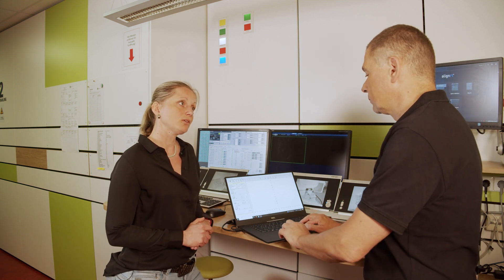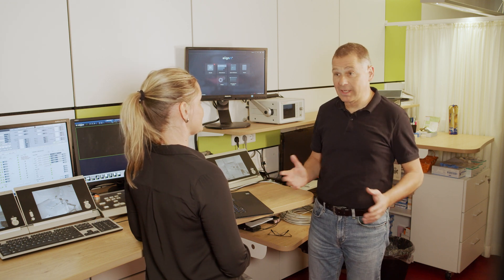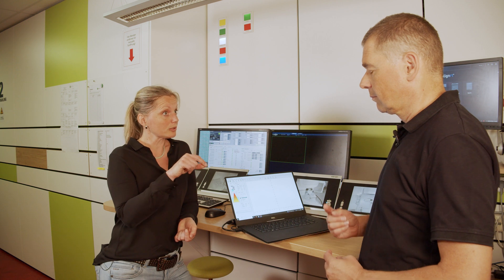The auto setup is finished now. You can leave the auto setup menu and start directly your measurements with the BeamScan. Directly? I'm a physicist. I have to check this out — I can't believe that. You can really trust BeamScan. But you could also do a small experiment: move the detector through the water phantom and watch the height of the small pin of the water sensor.